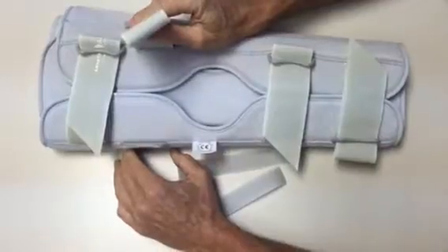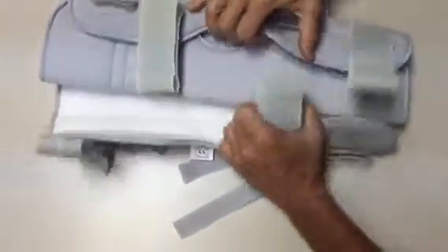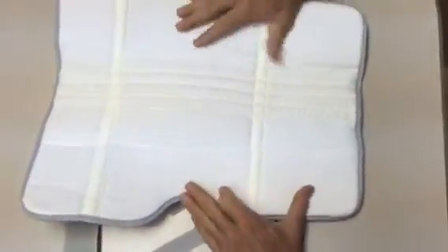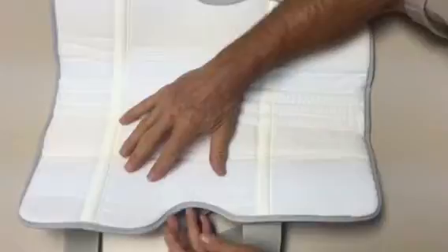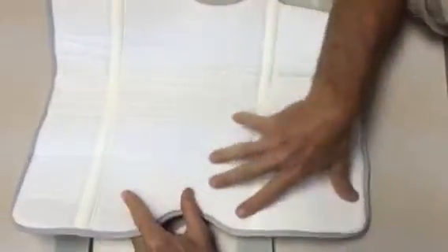This gives you the best customized fit. The only other feature that we think is very unique is that in the samples I saw in Doha at the hospital, the inside material was a brushed nylon, like the outside material.